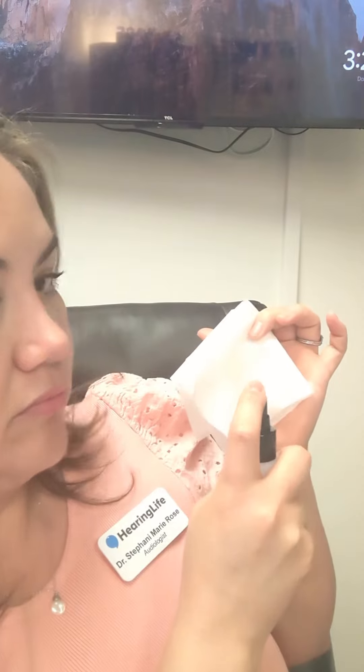Next, I'm going to go over what to do at nighttime. The first thing we want to do is clean our hearing aid. Every night you want to take a plain dry tissue and some of your hearing aid spray or ear mold cleaner. You're going to spray the tissue, not the hearing aid — just a couple spritzes will be just fine. Wipe the part that goes in your ear, which is the squishy tip called the dome. Push and twist on that dome to make sure it comes out nice and clean. You can even wipe down the tail piece and along the wire. This part we don't want to get wet because that's where the microphones live.